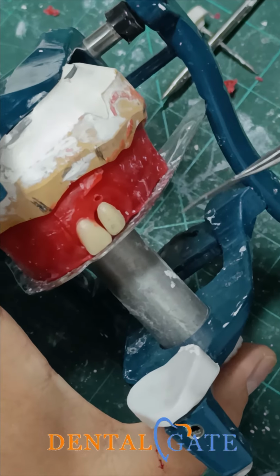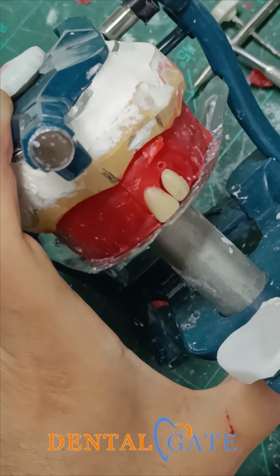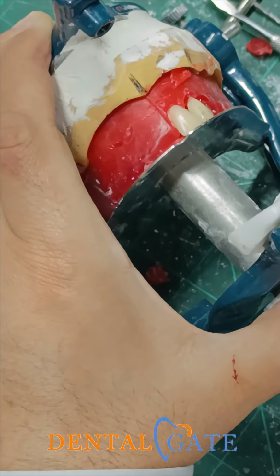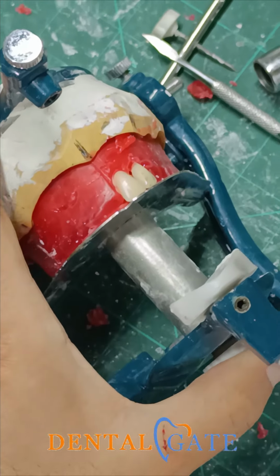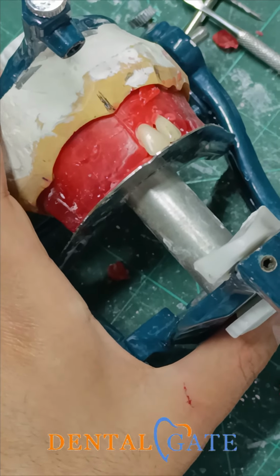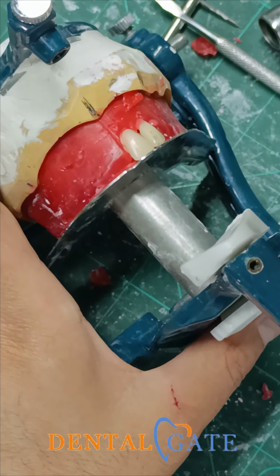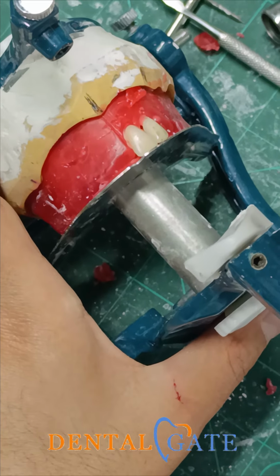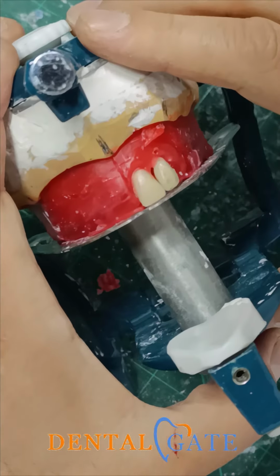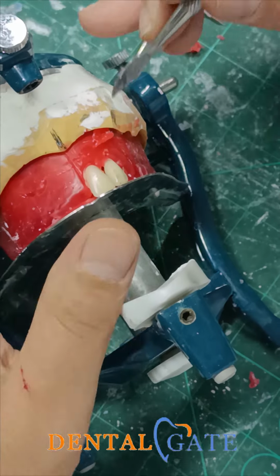make adjustment to the balanced occlusion. I need contact in the anterior region and the posterior region. So this is very essential. We have many concepts in the arrangement. We have a lingualized one, we have a monoplane one, and the most popular or most functional one is the balanced occlusion. The balanced occlusion involves many criteria I will perform, starting with the orientation of the upper, with the face bow, until reaching the final one with the arrangement of teeth. So the criteria will be applied sequentially in the lab and the clinic stage.